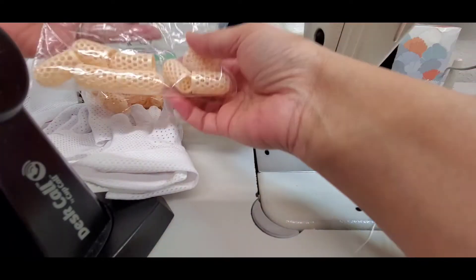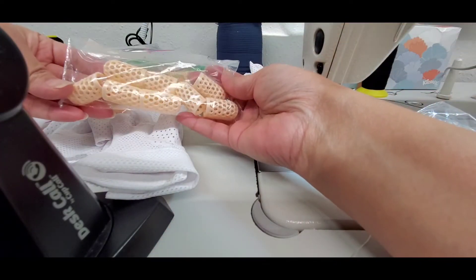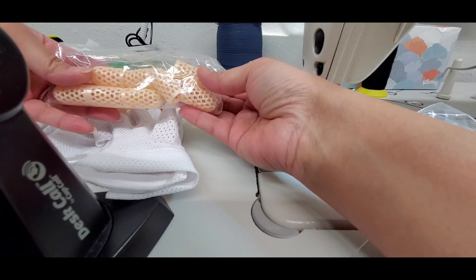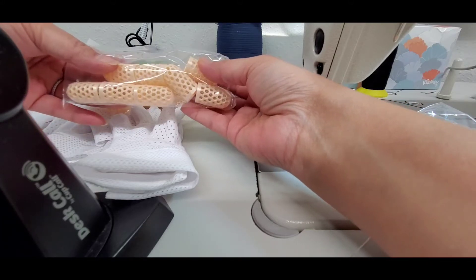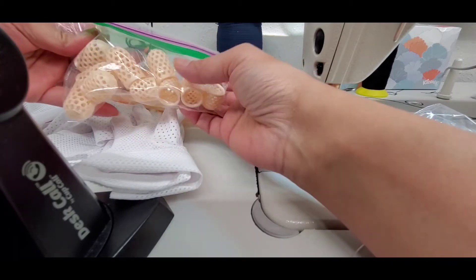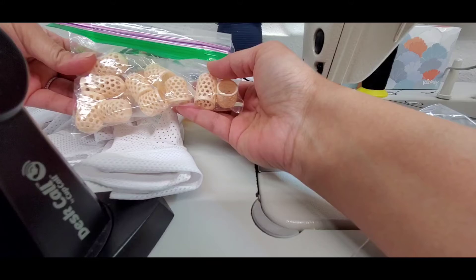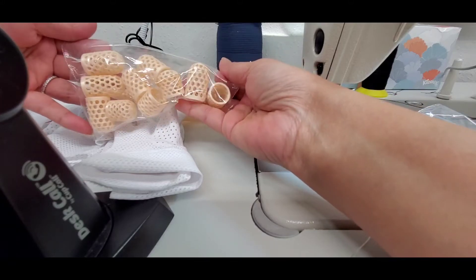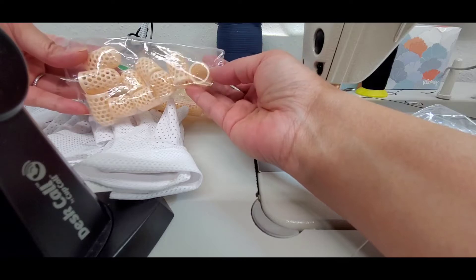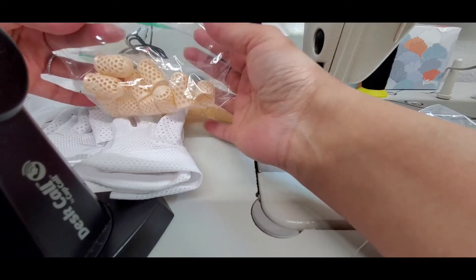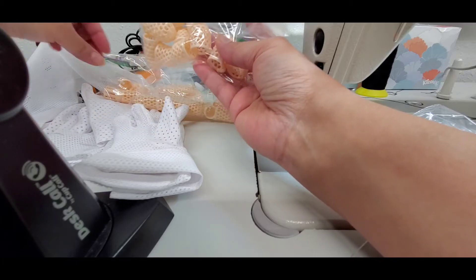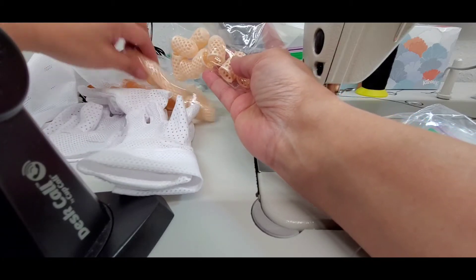Here I have 3D printed fingertip covers. I've looked for years for something like this and nothing came quite close to the actual thing that I needed. So my oldest son helped me modify some of the fingertip covers I found on the 3D printer website. I made several for them, so these ones are going to be wider and shorter in case they don't need as long protection on their fingers.